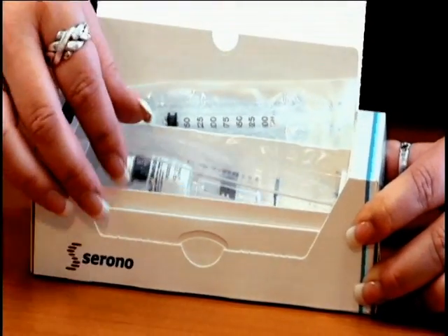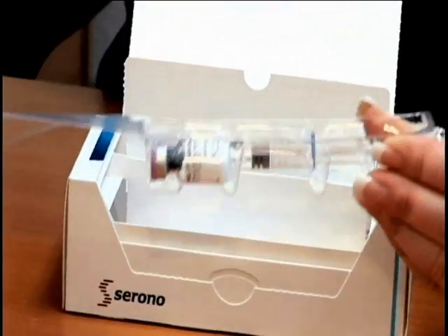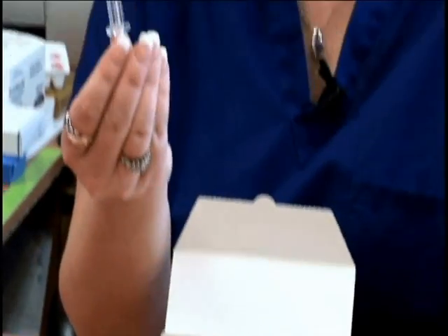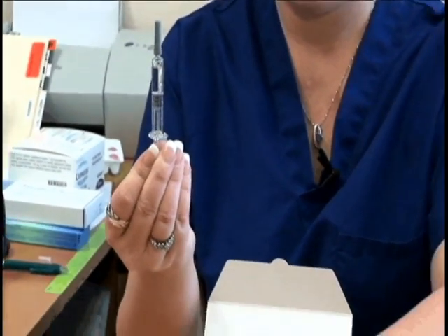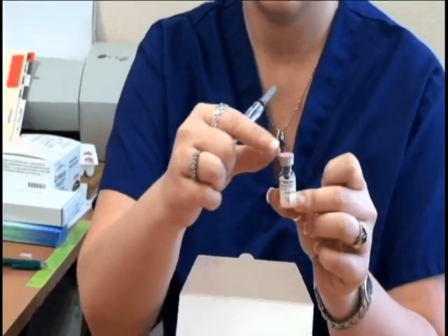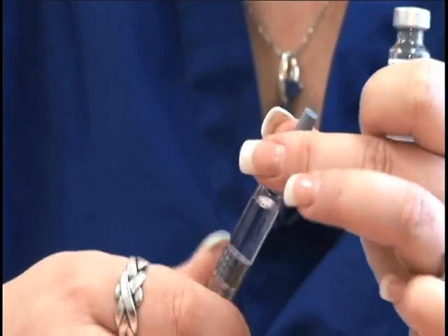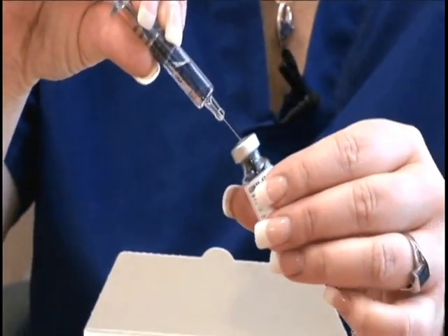What you want to do is open up the packaging, take out the pre-filled syringe, take out the vial of medication, take off the top of the vial, remove the cap from the pre-filled syringe, and inject it into the vial of powder.